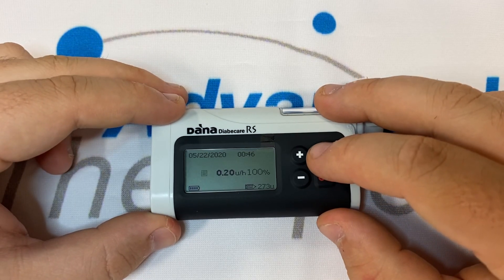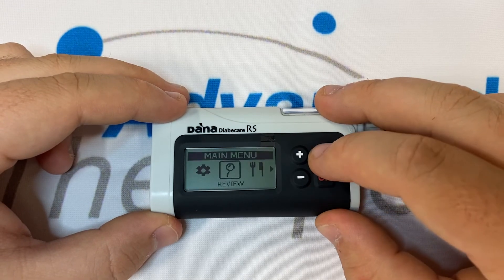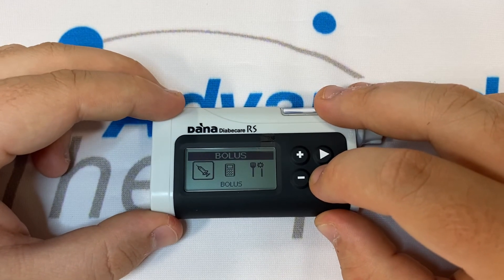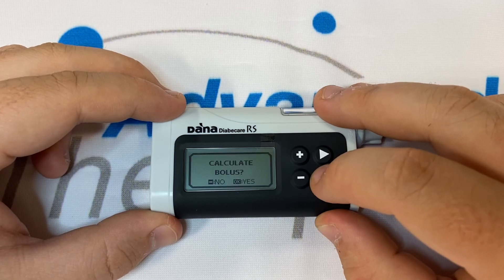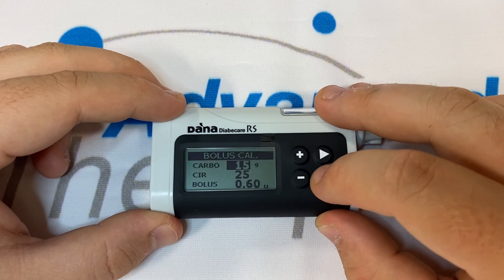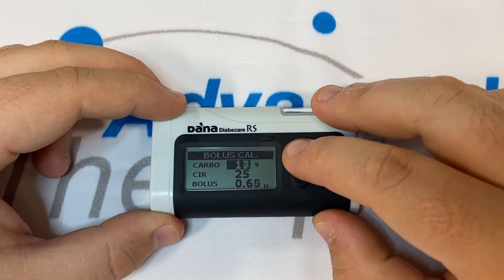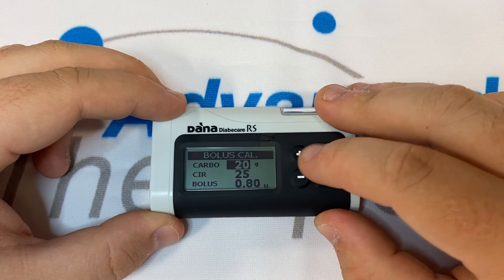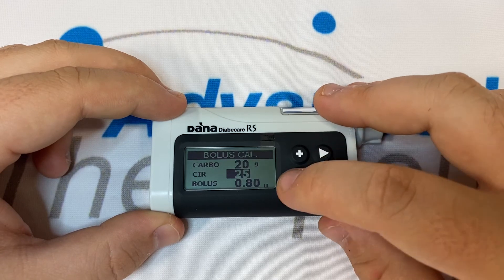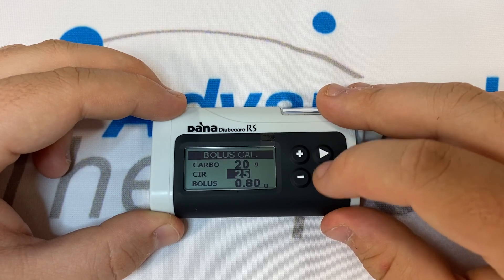If we wish to use the carbohydrate only calculator we would instead head into bolus, press OK on the first option and say yes when asked to calculate. Here we can just program in our carbohydrates. We may check or change our ratio and we can see the suggestion being built at the bottom of the screen.